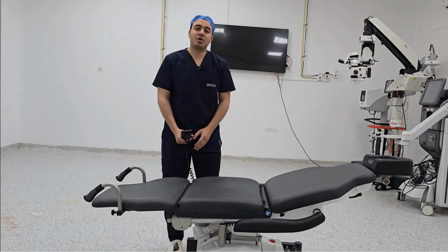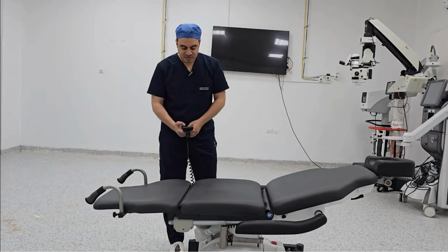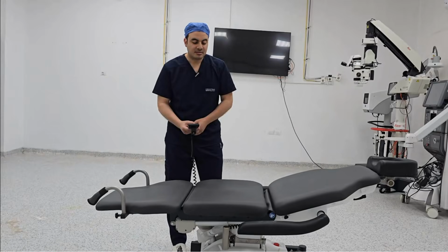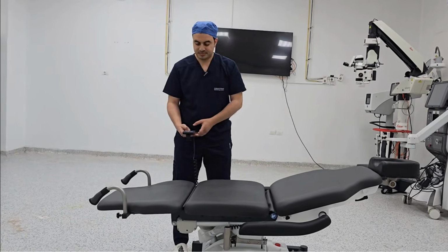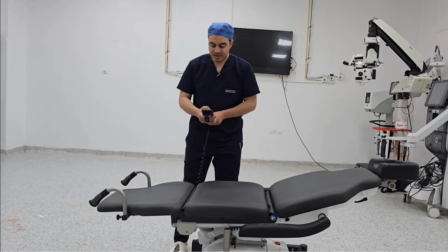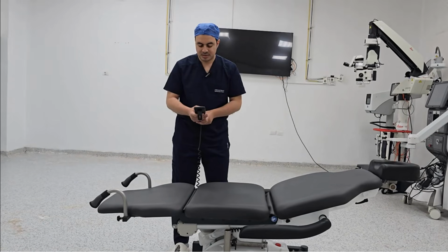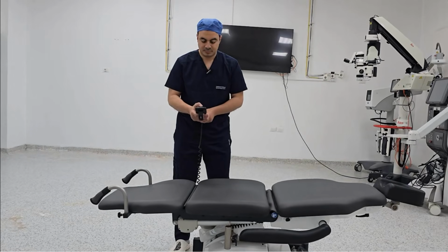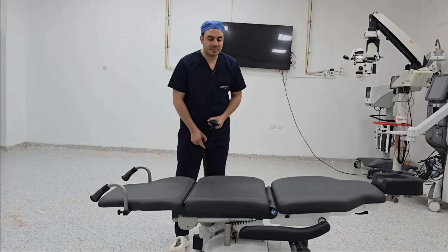This is the basal part. The basal part is the one fixed to the base of the table. It can be elevated and depressed according to the level and elevation to be comfortable for the surgeon. The fourth part is for the leg. This one can be moved downwards like that. We can make the chest part go back and reposition the head part.